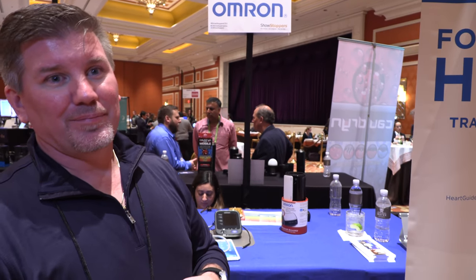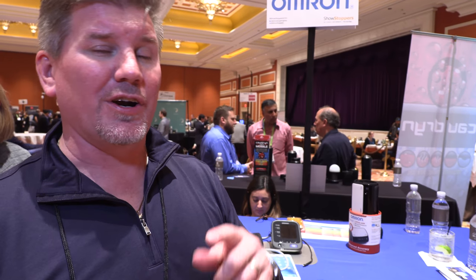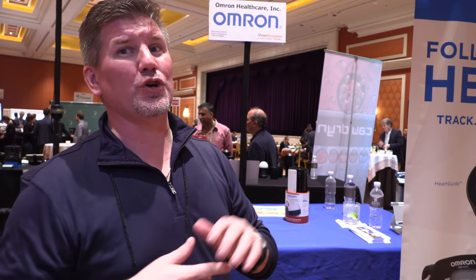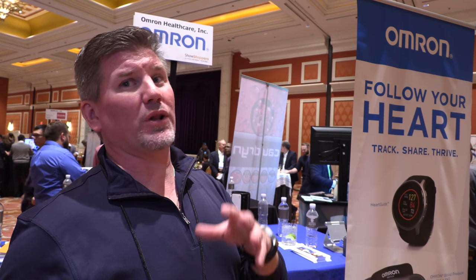It's like a no-brainer — everybody should get it, even people without heart problems. According to the American Heart Association, which just changed their guidelines two months ago, there are now over 103 million people in the United States that have hypertension. All of those people need to be monitoring because half of them don't know they have hypertension. One out of every two adults has hypertension. And even the half that do know, medication only works half the time. Being aware of your numbers is the first step to managing it.